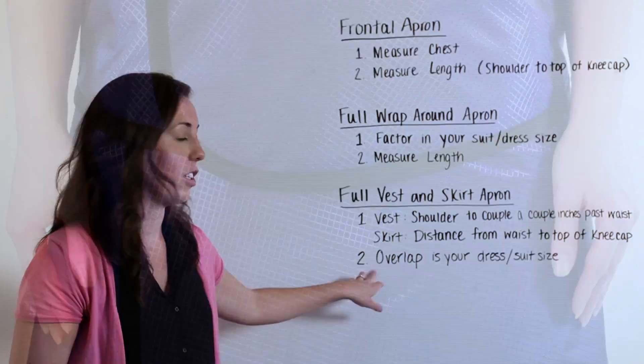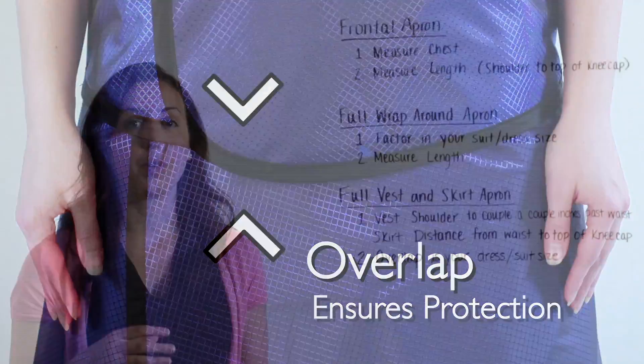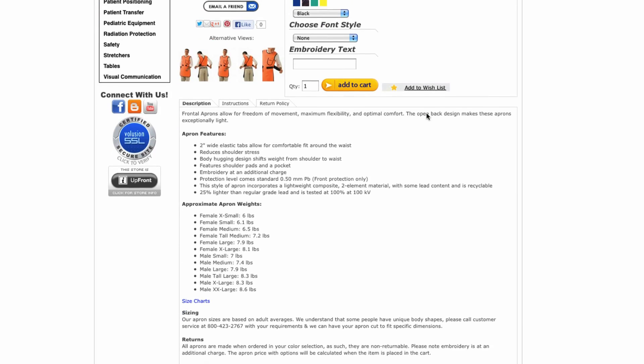The overlap is actually just your dress or your suit size. If you're in between sizes, always go with a bigger size for greater protection and comfort.